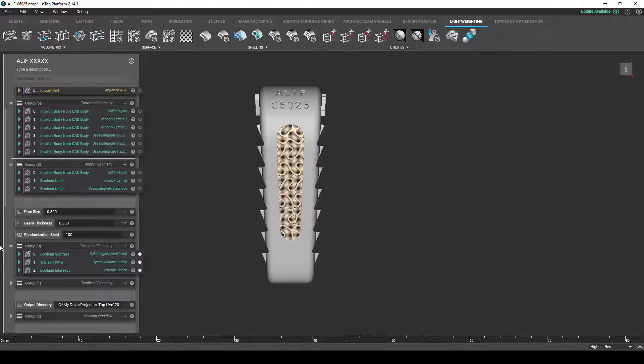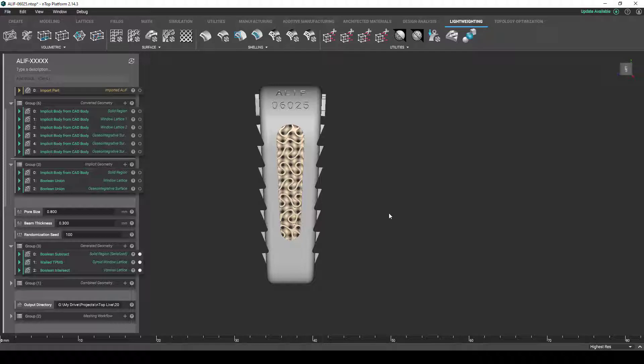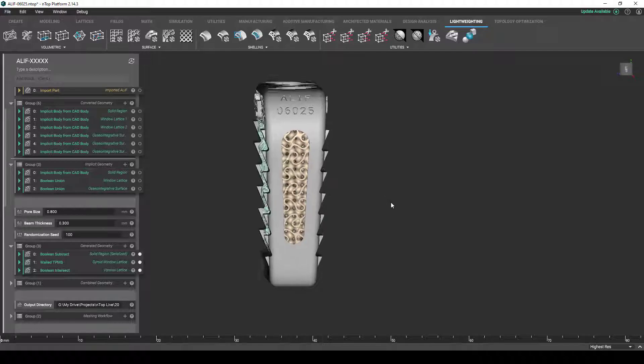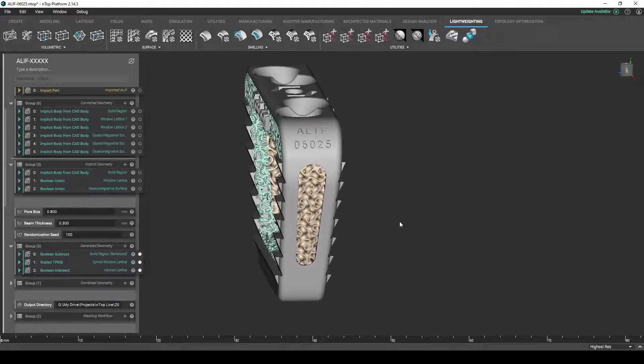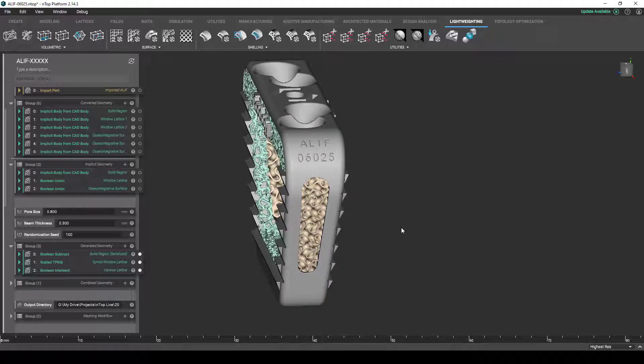By serializing our part numbers with this kind of convention and labeling them directly on the part, there is a massively reduced risk of part confusion during the manufacturing and post-processing stage. One can imagine where a machine technician can remove an entire build plate of dozens of these freshly printed and similar-looking ALIF devices and not really know which one is which. During the inspection process, just being able to identify the part at first glance can really expedite the time required to perform the inspection steps. So not only is labeling a great way to reduce operational risk in human error, it introduces the potential to just make things more holistically efficient.